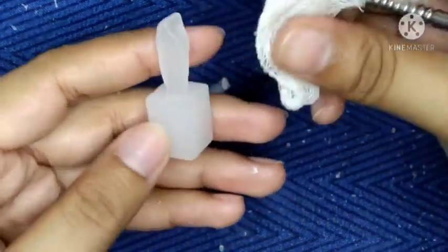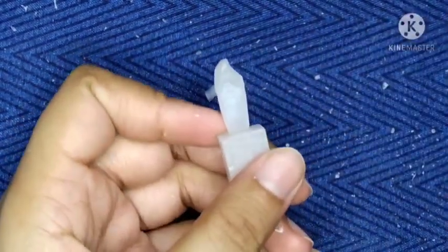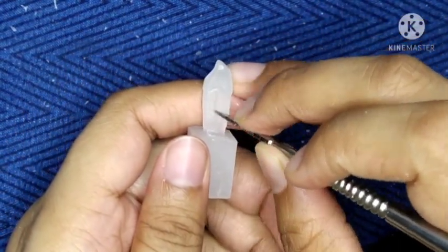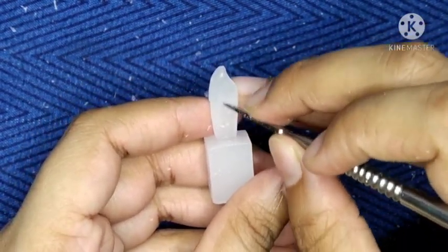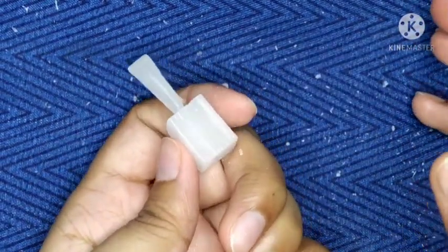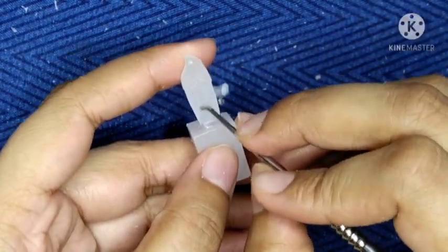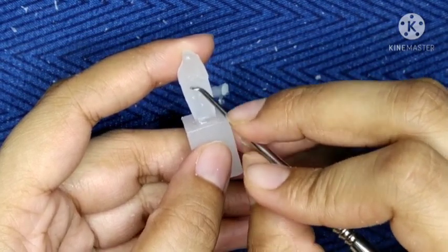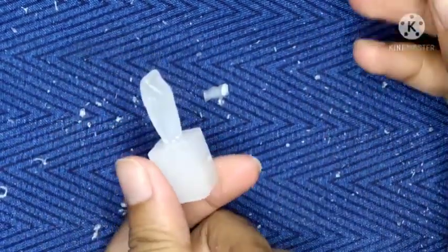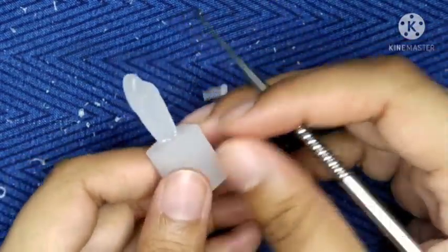After marking the curvature and all, we have to mark the developmental groove which is present on the mesial and distal side. Now here I am marking the developmental groove. I am drawing one line like this and like this. Now I will remove the wax accordingly. Hold the tooth very carefully, as the tip is quite delicate, and with a very light hand, remove the wax. So here you can see I have marked the developmental depressions on this side and this side, in my mesial and the distal.